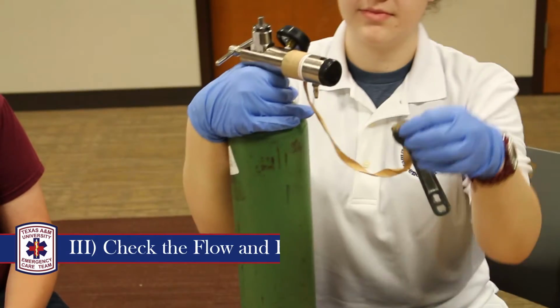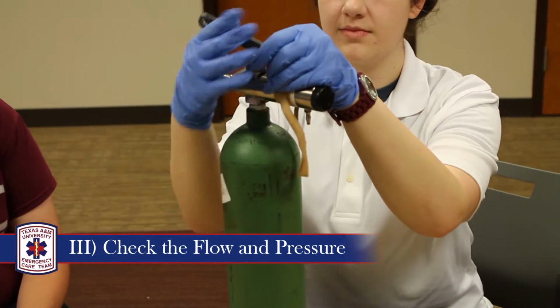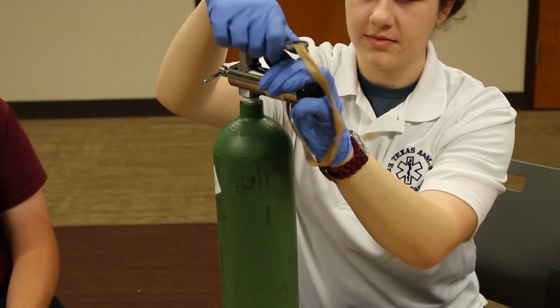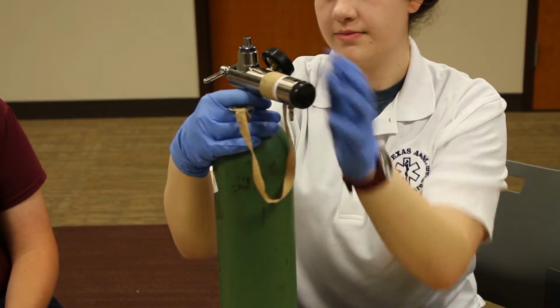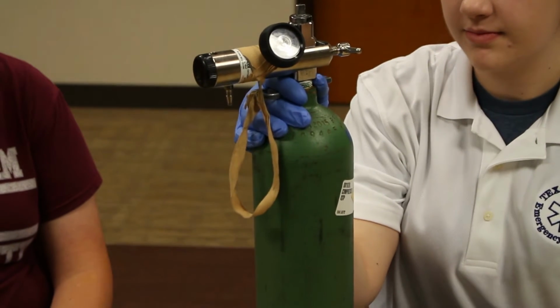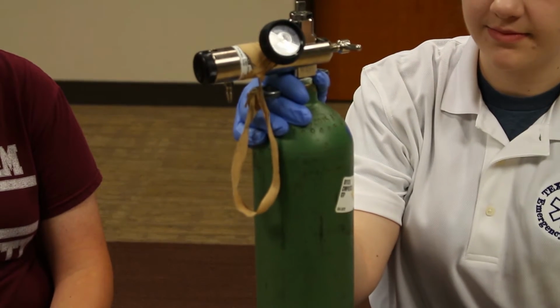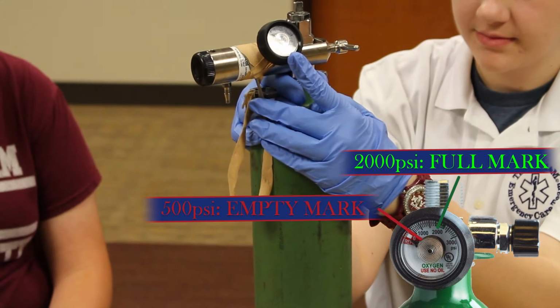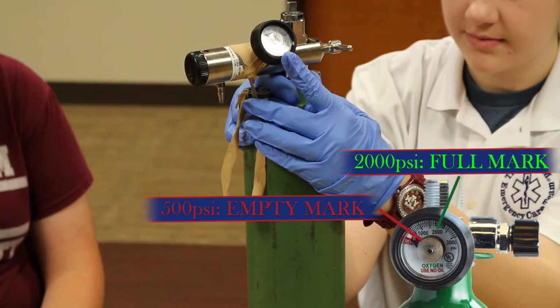Next, using the wrench, verify the flow and the pressure of the tank. You should hear a small hiss, and you should see the arrow jump. Note that for a regular oxygen tank, the normal oxygen levels are between 500 psi and 2000 psi.